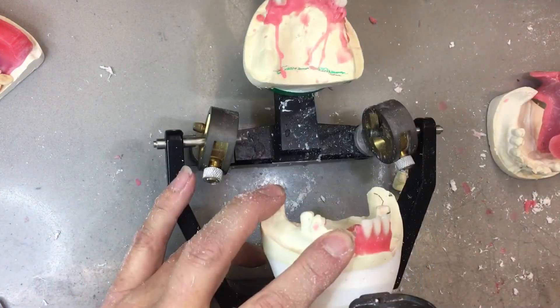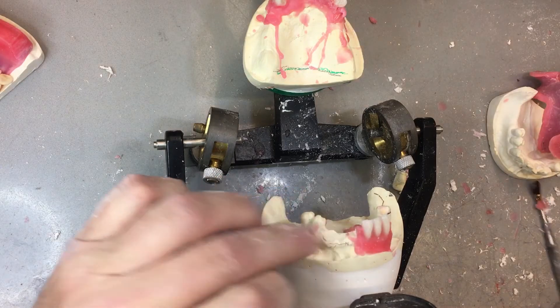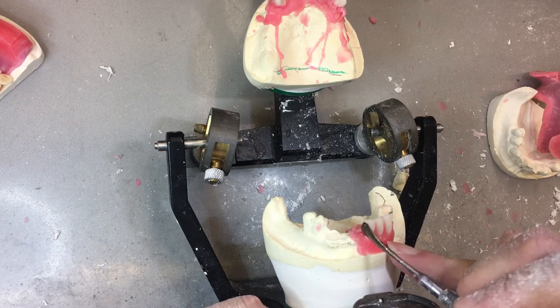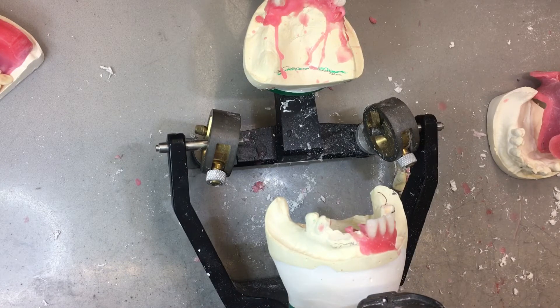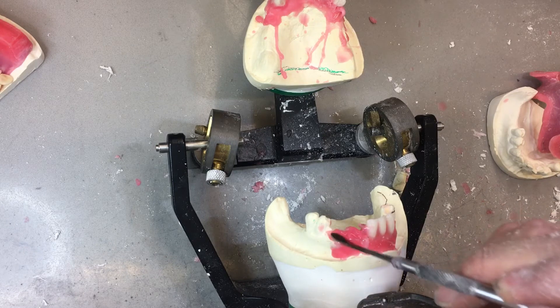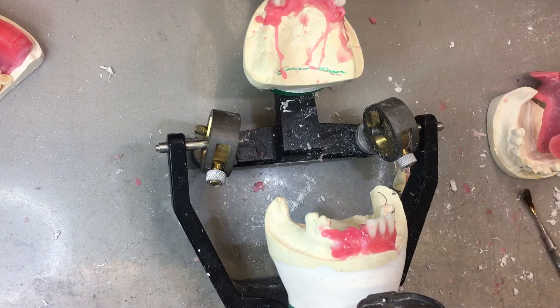Now last but not least — the bottom three. I've taken them out, but I have these other three teeth here that were in relationship to these. I also have where the ridge is. It's borderline Class II, but I think I can stretch half a millimeter, three quarters of one to make it Class I, which was my goal here. Later on today I have some of my own clients — I'll show you pictures pre-operative and post-operative, just recently.